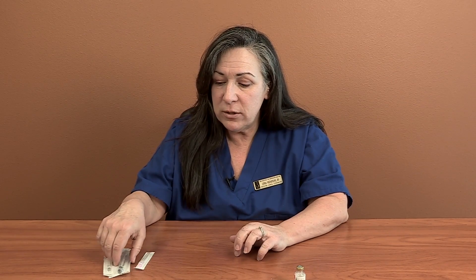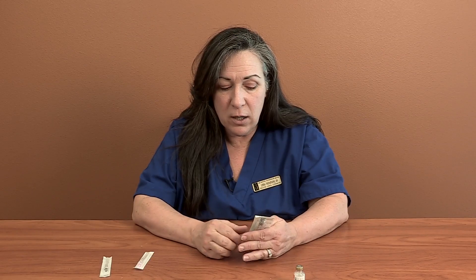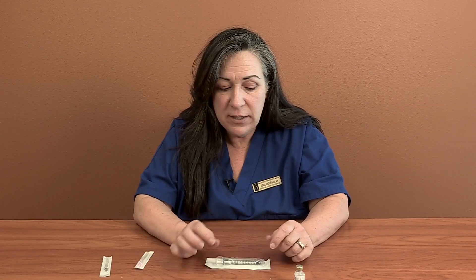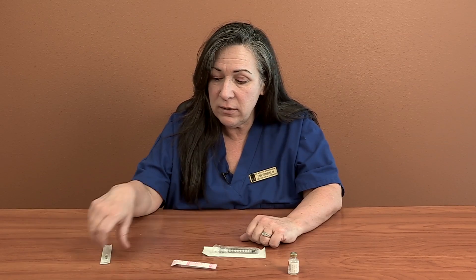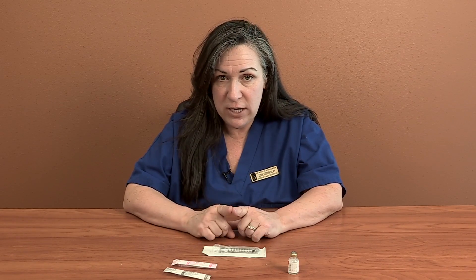What you're going to be ordered from the pharmacy by your coordinator are one milliliter syringes. You want to get yourself out a one milliliter syringe — generally it doesn't have any needles on it. And you want to grab yourself an 18-gauge needle and a 22-gauge needle, because when you're doing an intramuscular shot, I want to draw out with one needle but inject with another.